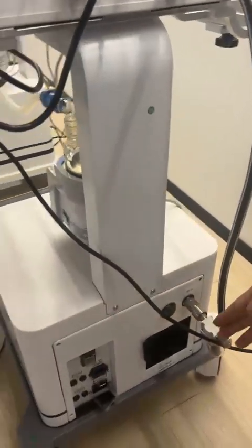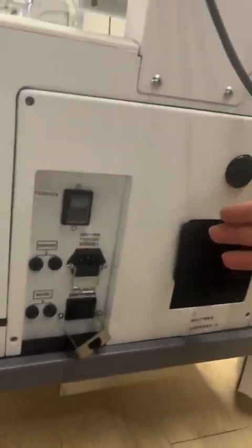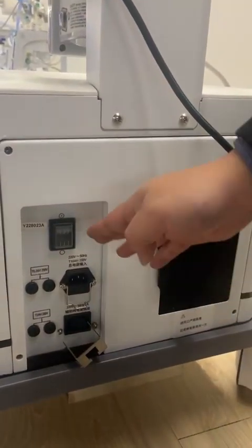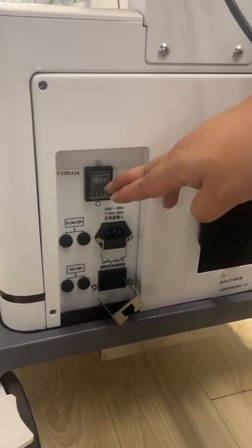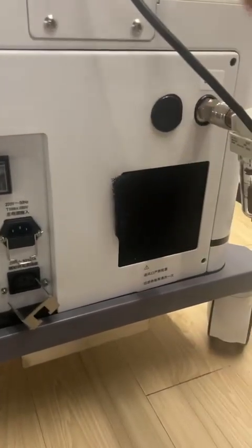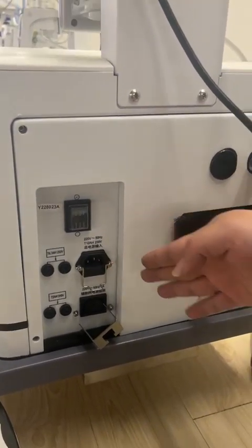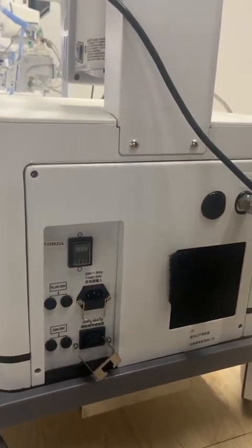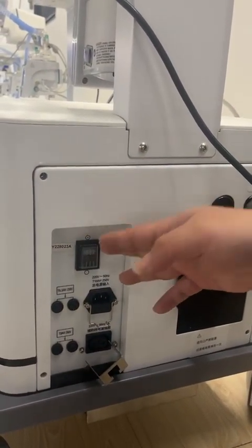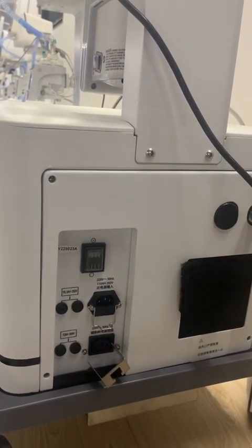So first, we still look at our air compressor. By the back side of the air compressor, you can see the fourth advantage is that here, not only with the main power, we also have 2 auxiliary power sockets. That means no matter for the humidifier or the main engine, we can all connect with our air compressor to give the electricity. So that means only the main power, we need only one cable line to be connected with the main power to the AC power.